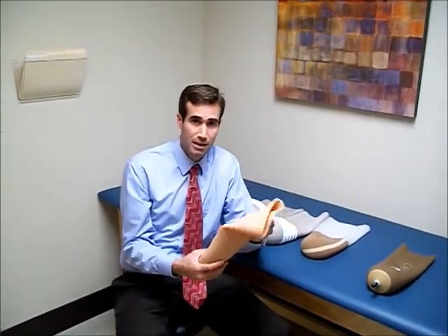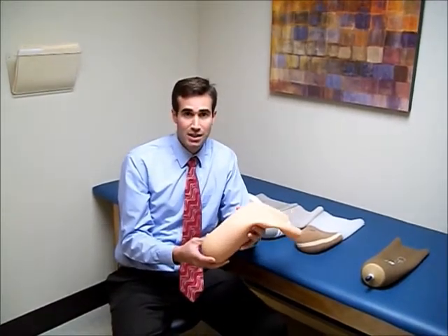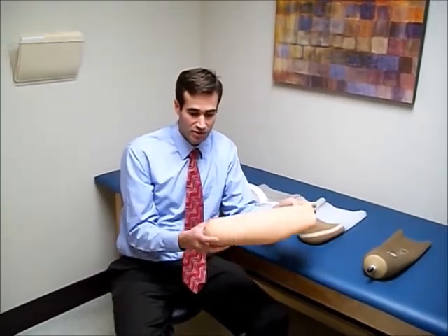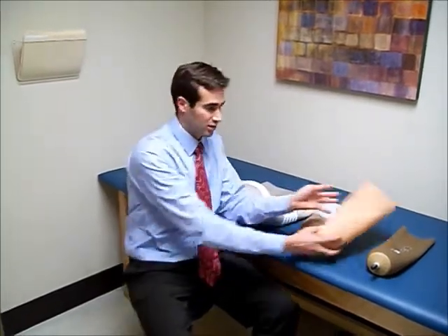The other type is referred to as a cushion liner. The cushion liner has no pin and is used with suction or vacuum style prostheses. Liners used for suction or vacuum are typically not covered with fabric so that you can maintain a seal with the sleeve. This is a good example — a silicone gel liner without fabric so that you can get suction.